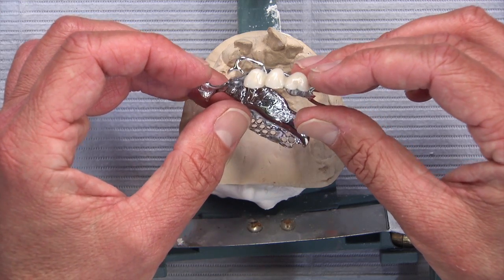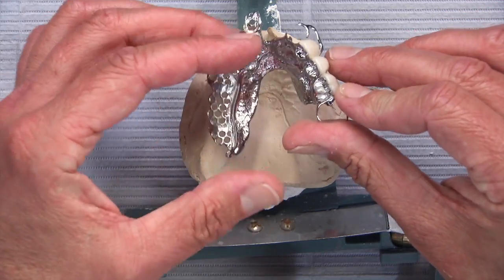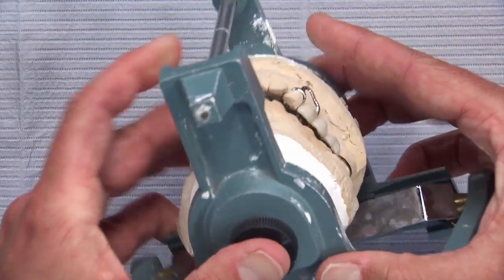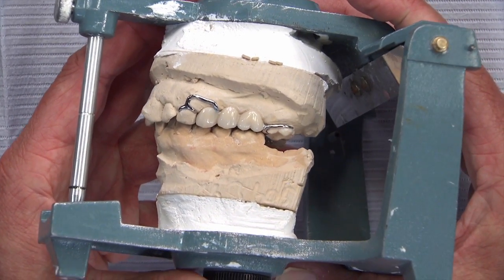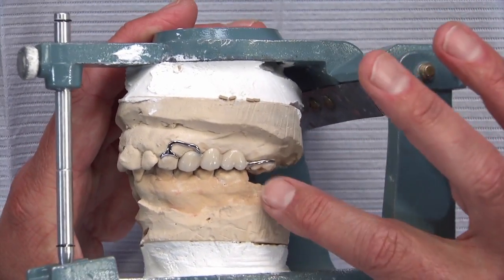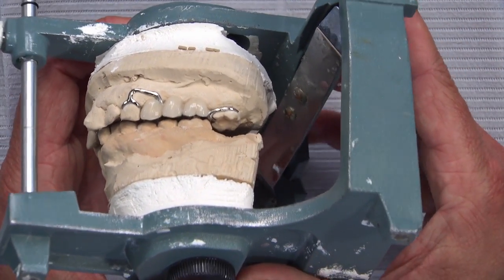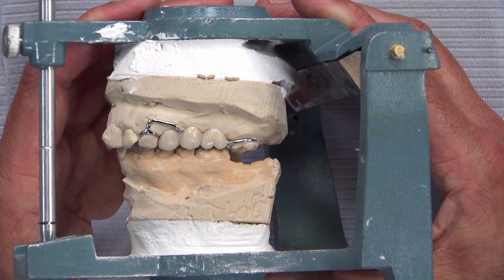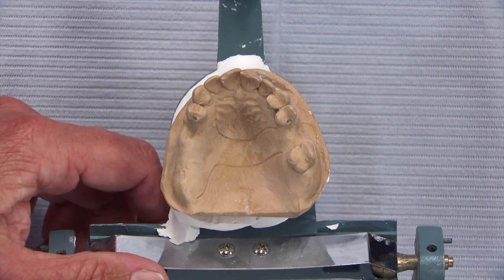Compare that to bonding a denture tooth: you can't have undercuts, so it's like putting an inlay in the same tooth. With an inlay you need a prep that's not only not undercut but flared, so retention isn't the same as when you can have undercuts. By having the patient occlude on those metal occlusals and ensuring they're not hitting directly on the composite in excursive function, this is a great way to achieve aesthetic anterior teeth. Consider composite facings almost any time you've got anterior teeth on a partial where you don't have much intra-occlusal clearance.